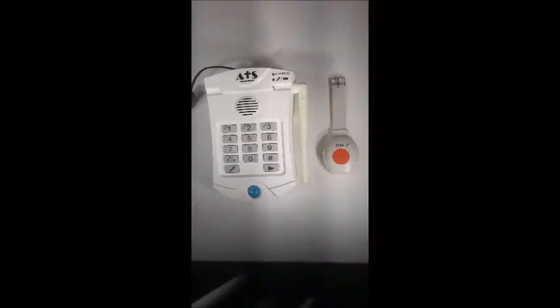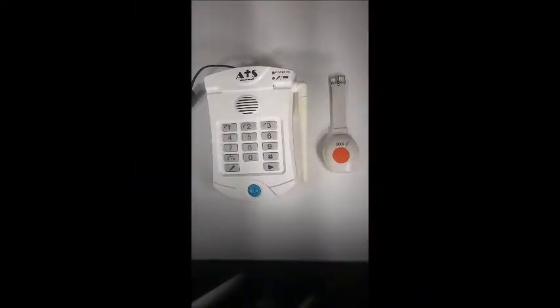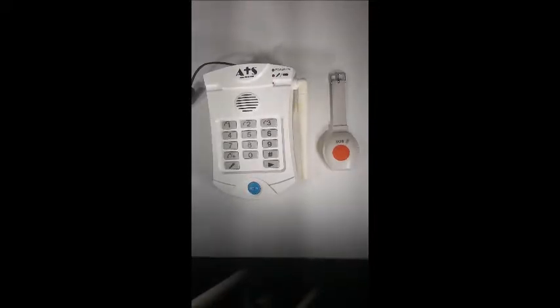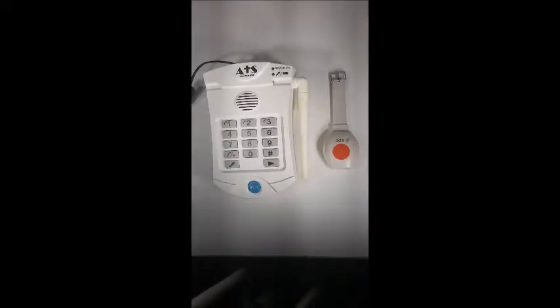Okay, this is a short video on how to program and pair the HD 700A pendant to the base unit.